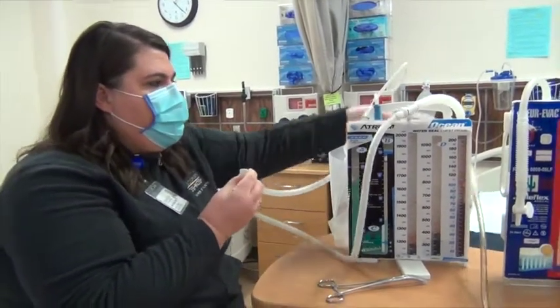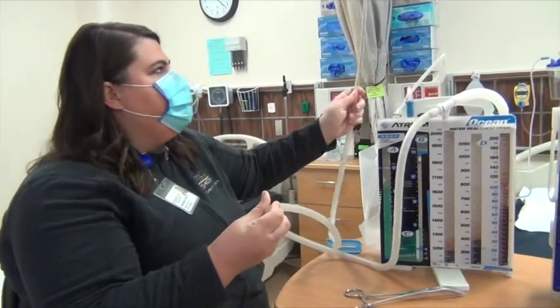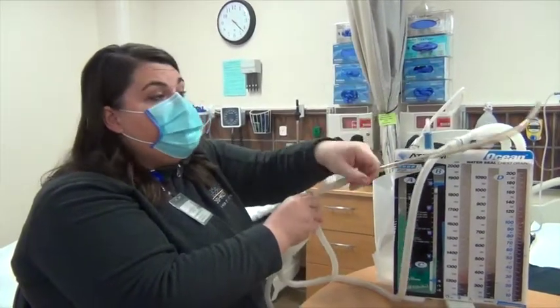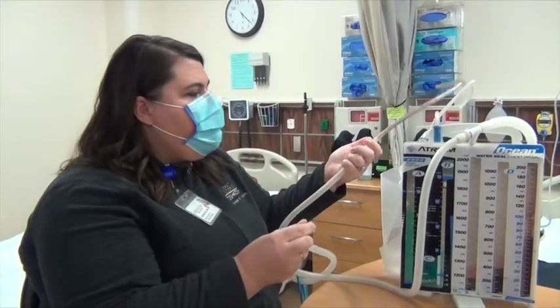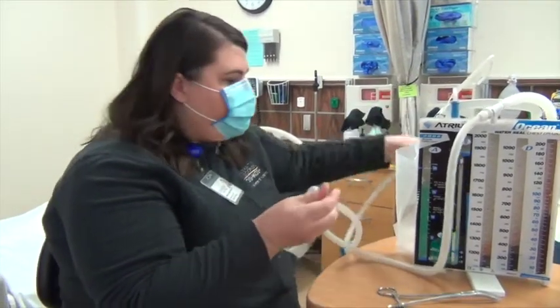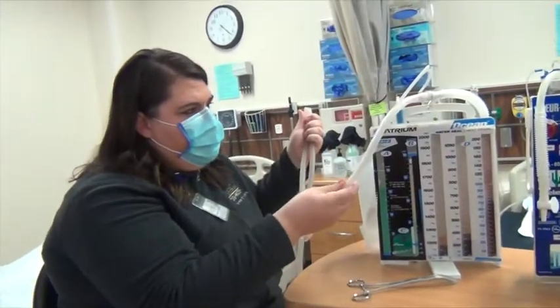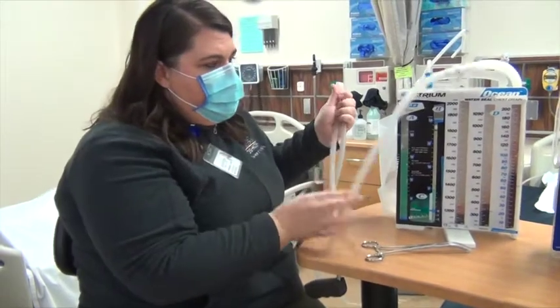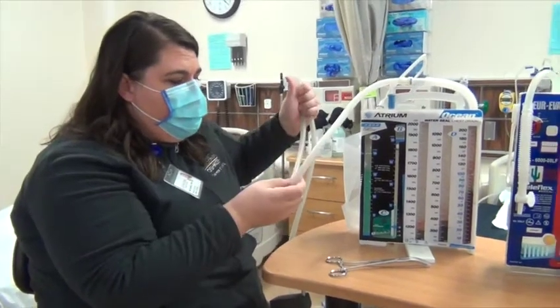That means that there is an air leak somewhere above where I kinked it. So in this case, this would be like the chest tube inside the patient. There's a leak coming from the insertion site around the skin of where the chest tube's going into the patient, or at the connection where the chest tube is attached to the drainage chamber. If it was still bubbling in here, that means it's somewhere below, so that would mean it's somewhere with the connection with the chamber, or there might be a crack in here or something. So in that case, I would just get a whole new collection chamber and restart that.